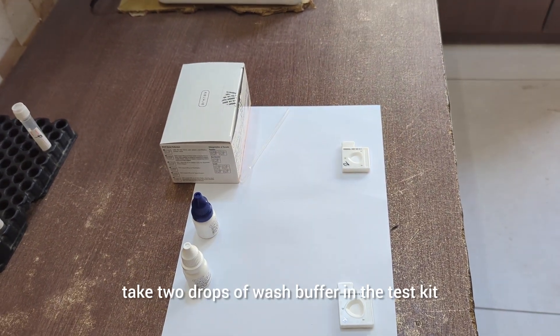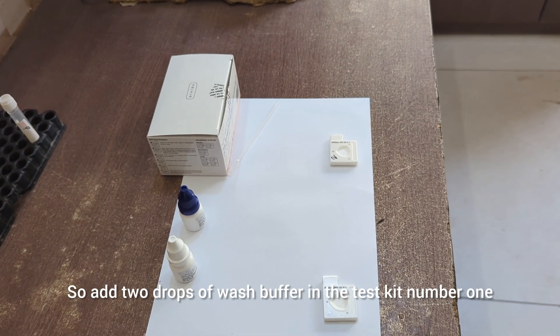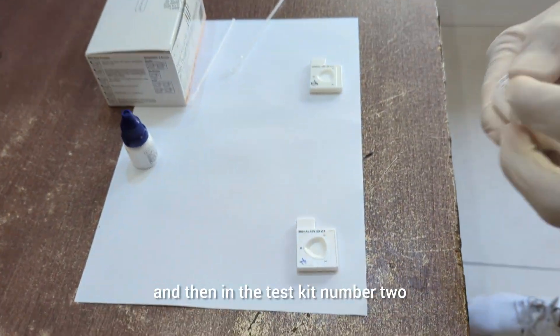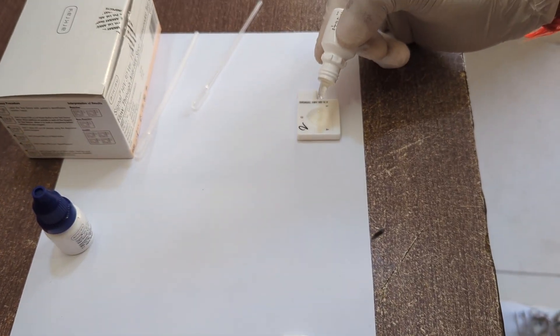After entering the number, now you have to take two drops of wash buffer in the test kit. Add two drops of wash buffer in test kit number one and then in test kit number two.